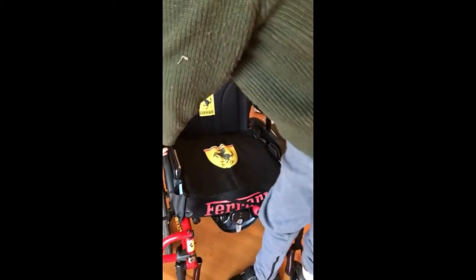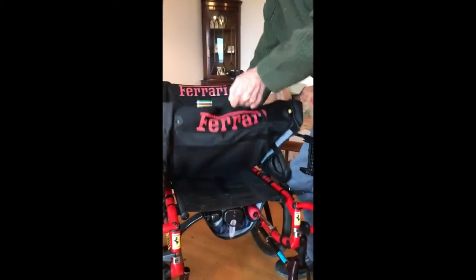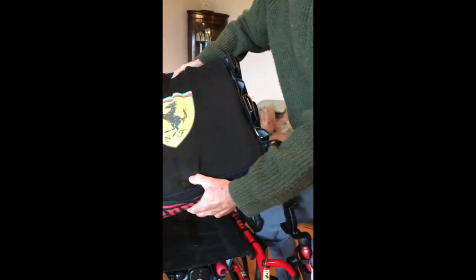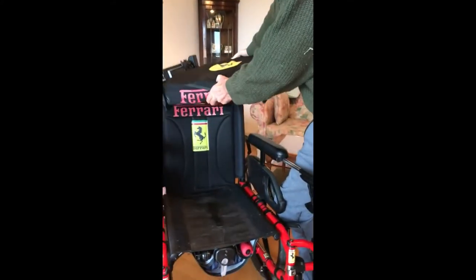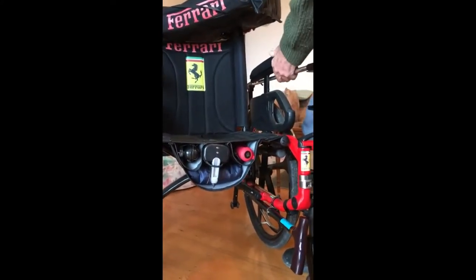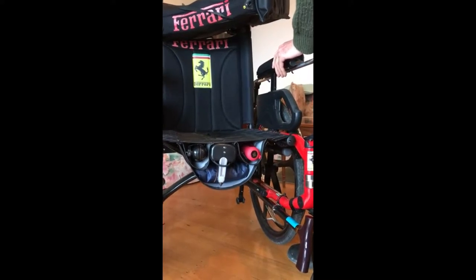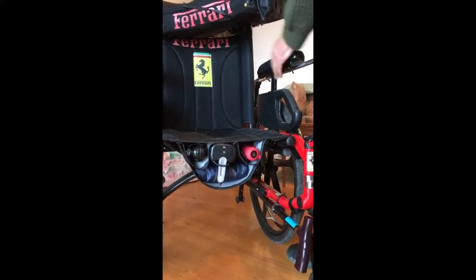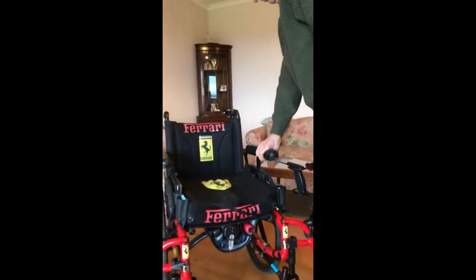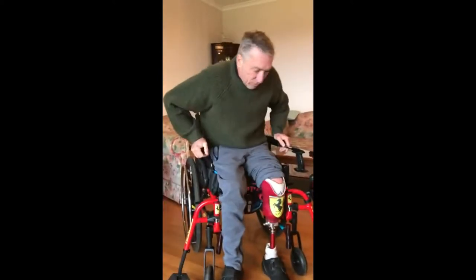I can still get into my cushion, so if any maintenance on the cushion has to be done — or the ROHO system — the velcro things come off. It's very simple. There is my chair and my cushion. As you can see I've got a number of pockets. We also have under the chair, which is an area that we don't normally use — there's a lot of storage for things we'd use on a not-everyday basis: rain gear, service equipment, service tools for fixing a flat tyre. I'm going to sit in my chair and take out everything that's been added to make my life easier.